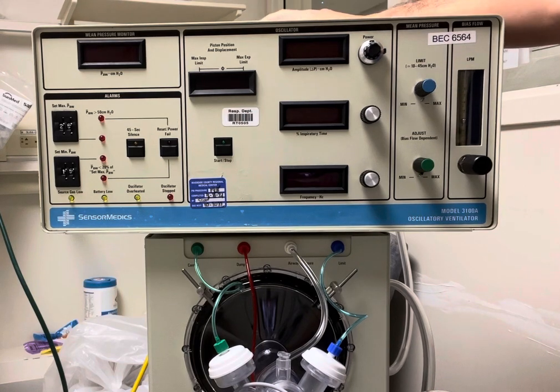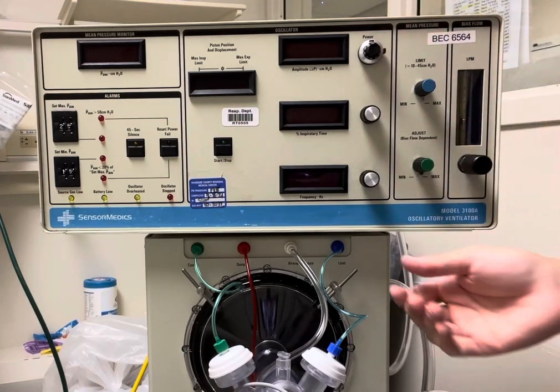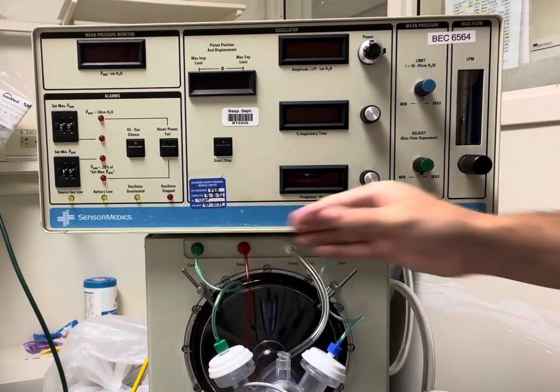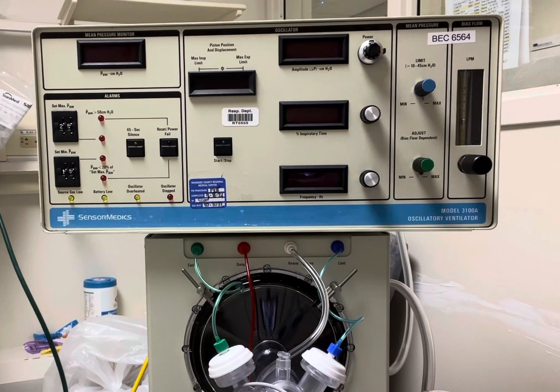We're going to make sure that our gas sources are hooked up to oxygen and air and we are plugged into a red outlet. I'm going to make sure everything is plugged in correctly — these are color-coordinated. This should be hooked up. I'm going to go ahead and grab the ventilator.